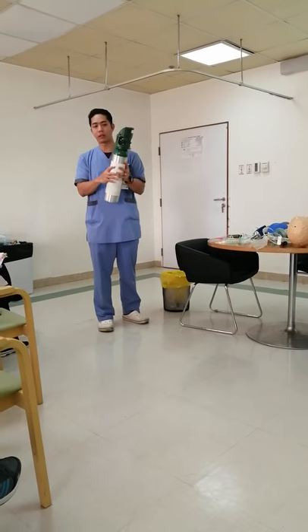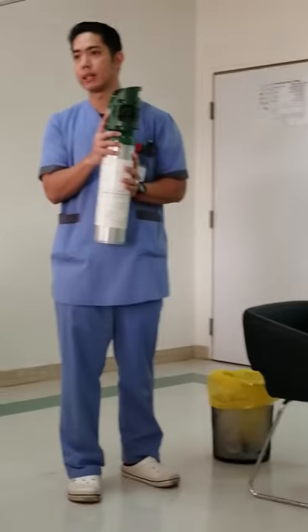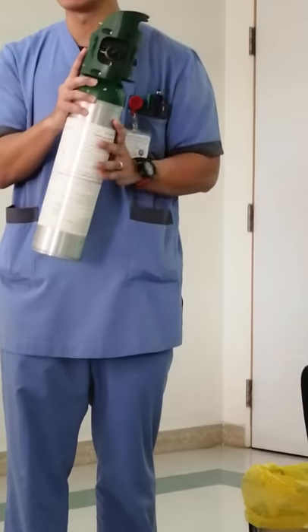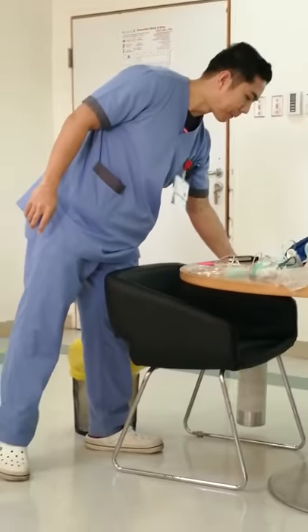Again, the full amount of this is 560 — 560 liters. So you can use it for a long time.